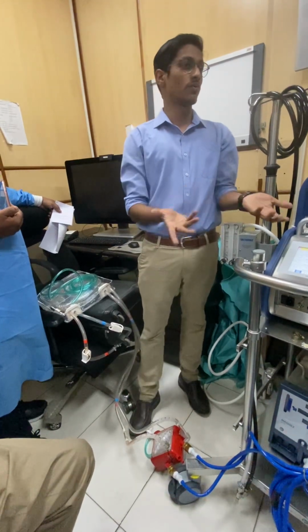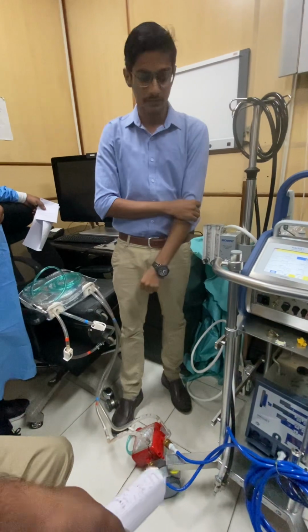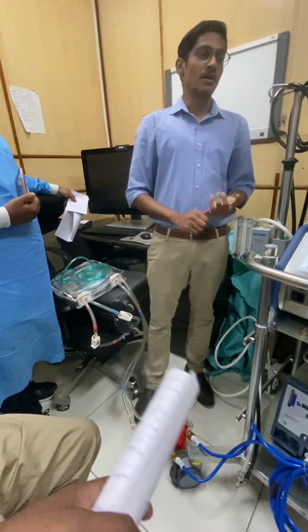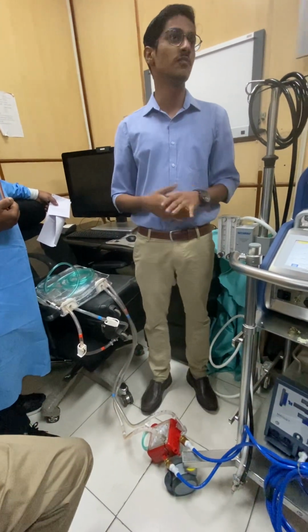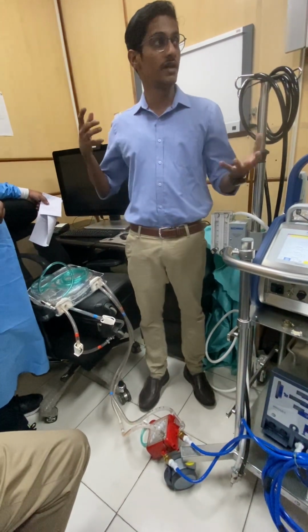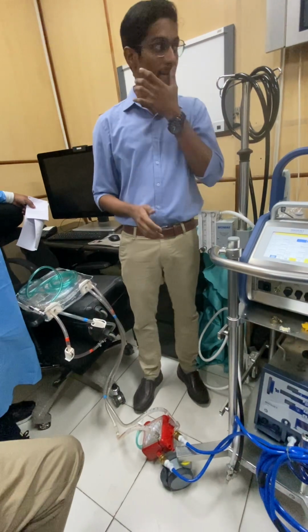I know, it depends upon how much you want to regulate the patient temperature. If, for example, we don't want to regulate patient temperature, then we don't need to connect this. In case the heater is not available, for example during transport, there will not be a very drastic or sudden drop in patient temperature.